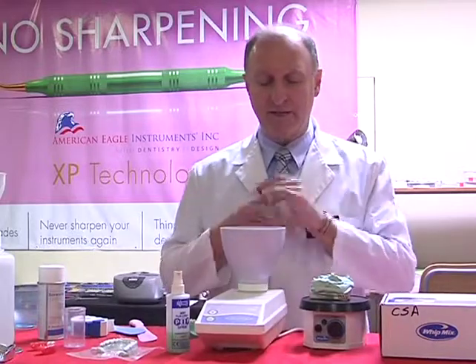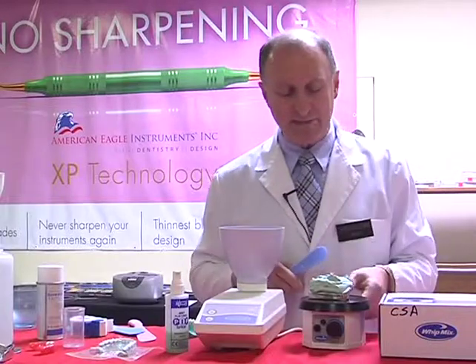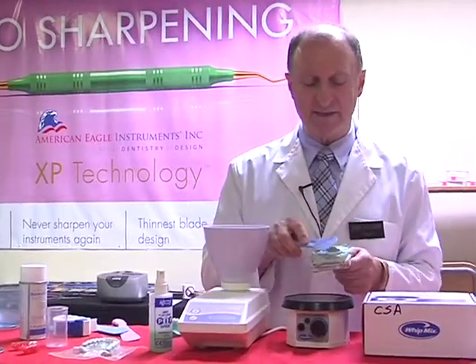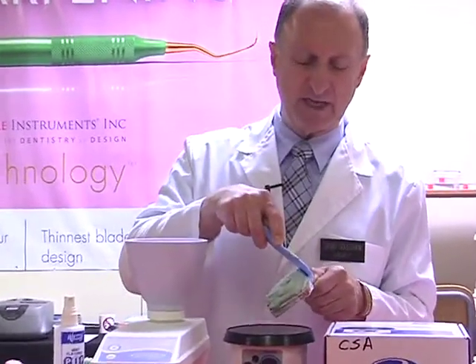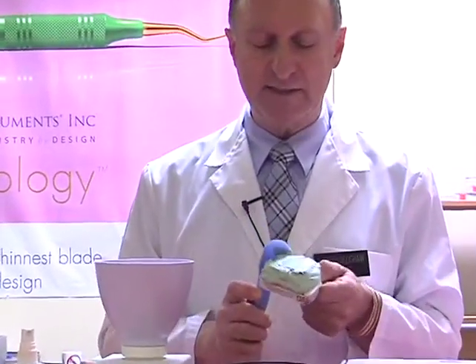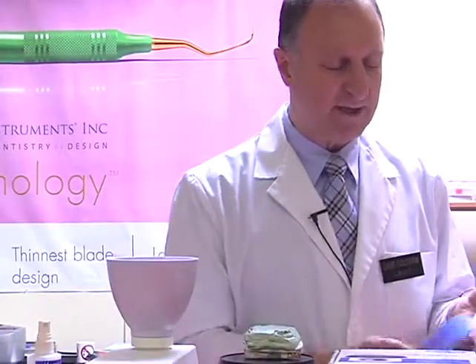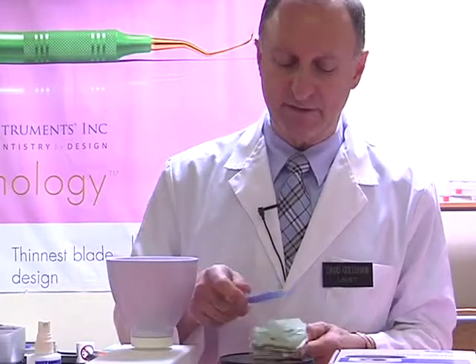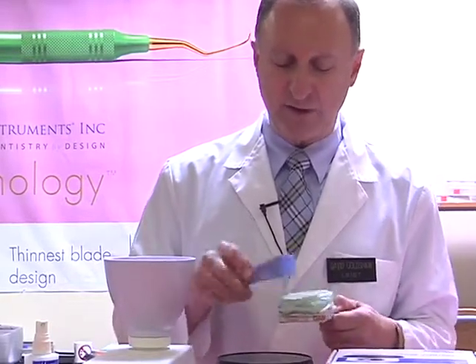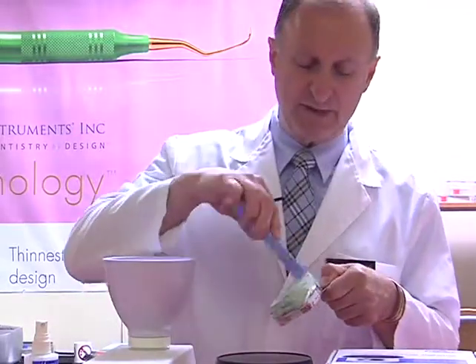We can put our alginator aside, but come back to our model. So again, we've waited for that surface shine to dissipate, and then we can actually smooth now our surface and begin to shape our stone. And this is going to save us a lot more time than later on when the stone will be hard. So I'm just lightly going to flatten out the surface. I'm still going to have enough base, which of course is very important. We need to have a good base on our model.